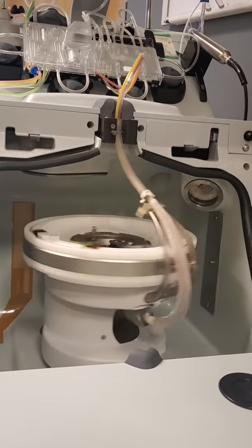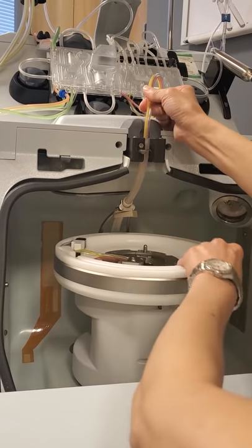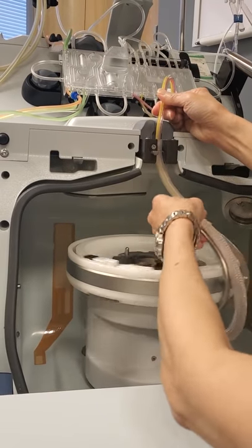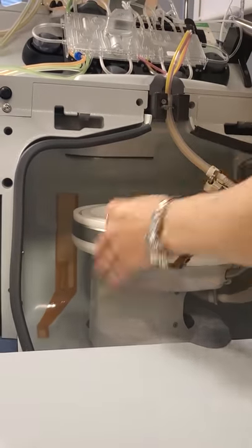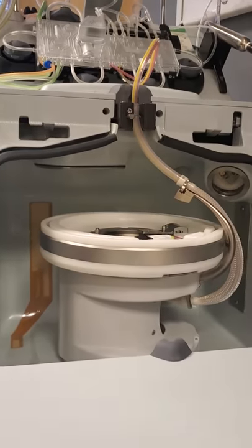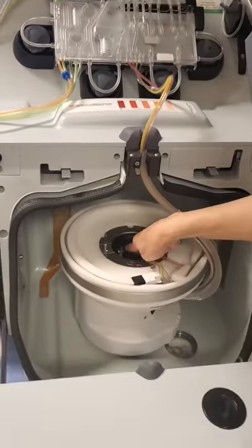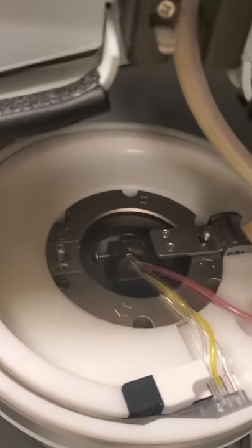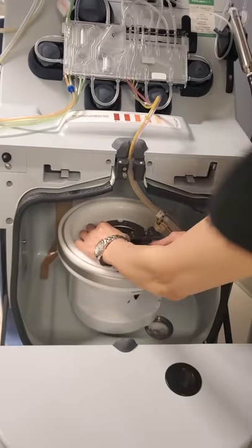Let it come to a rest and then double-check it, starting from where you left off — getting your hands and eyes on everything: upper collar, upper bearing, mesh sleeve, lower bearing, channel flush with filler, locking pin popped out. You see the mark. And the red and yellow tubes exit the lower collar without lying on top of the hole.